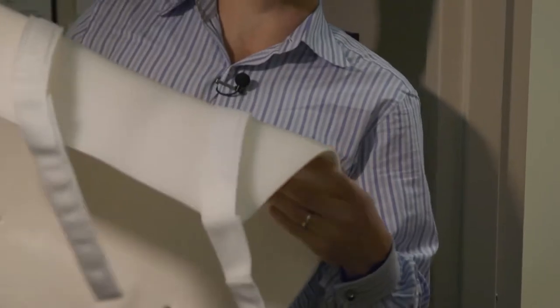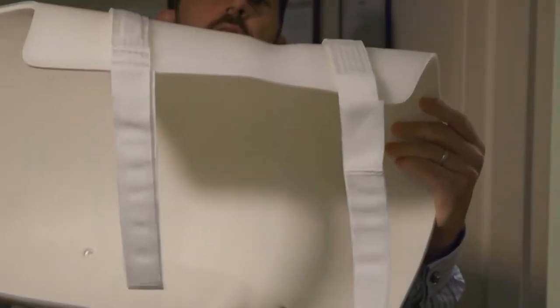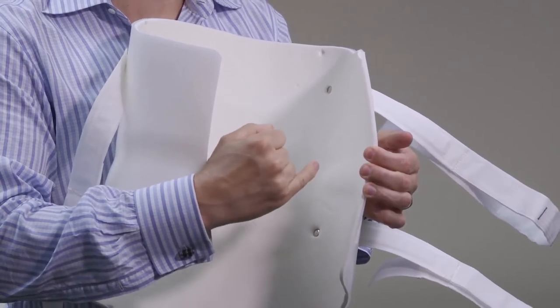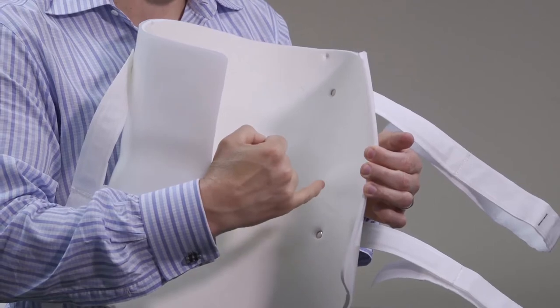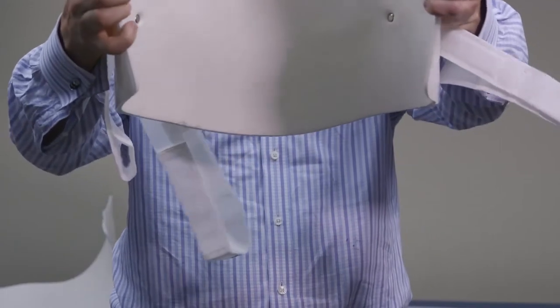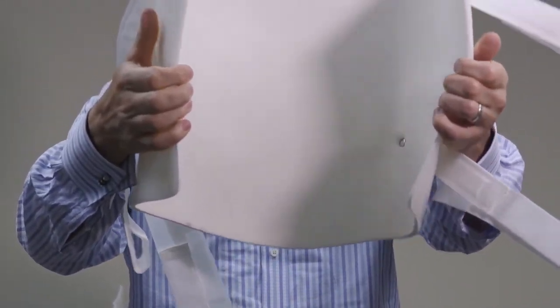If you look close at the brace itself, you can see there's a little indentation right there as well. This is the waist groove I'm talking about. Sometimes they're more pronounced, sometimes they're not — it probably has to do with the fabricator or the person fitting the brace. But if you can see it inside here, that's where the waist groove is. That's what we mean by the waist groove.